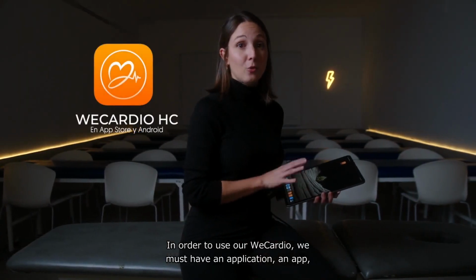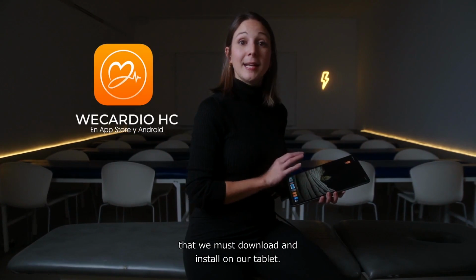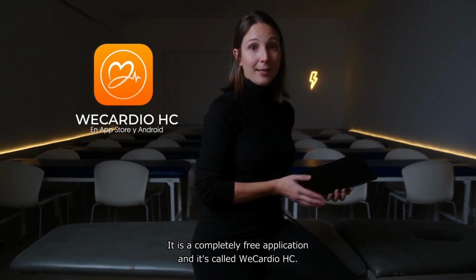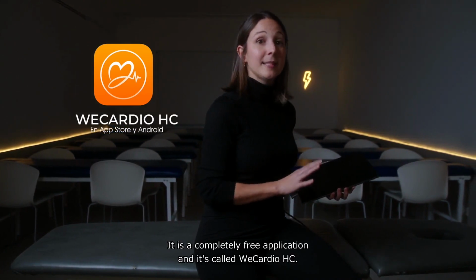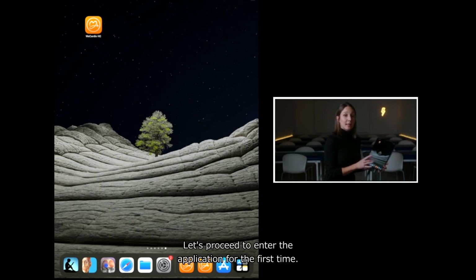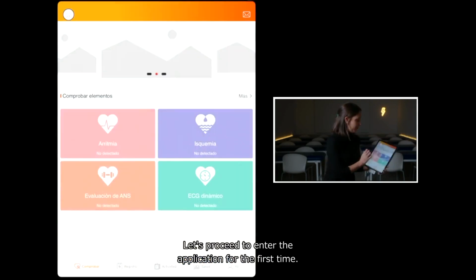In order to use our Wecardio, we must have an application, an app, that we must download and install on our tablet. It can be installed on Android or Mac tablets. It is a completely free application and it's called Wecardio HC. Let's proceed to enter the application for the first time.